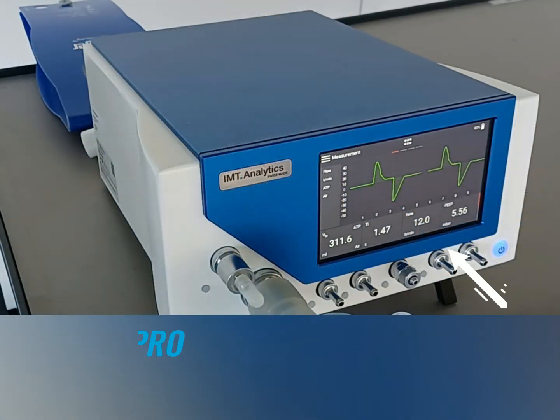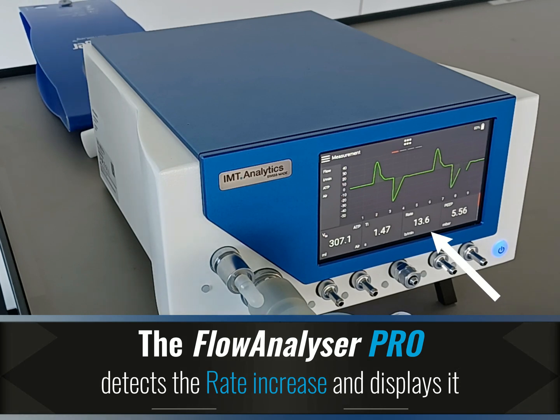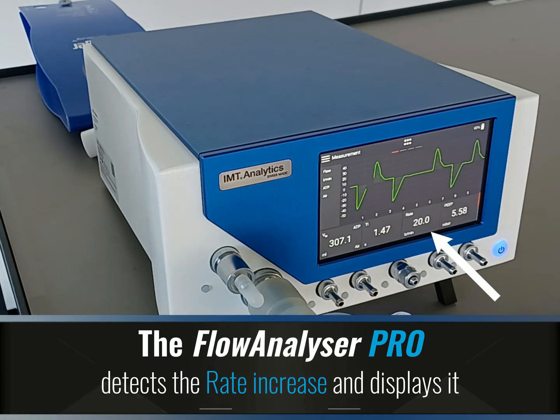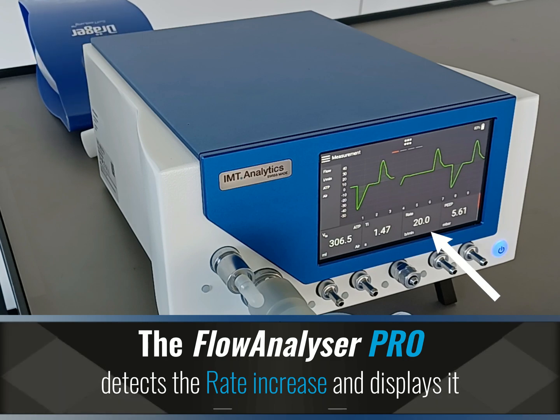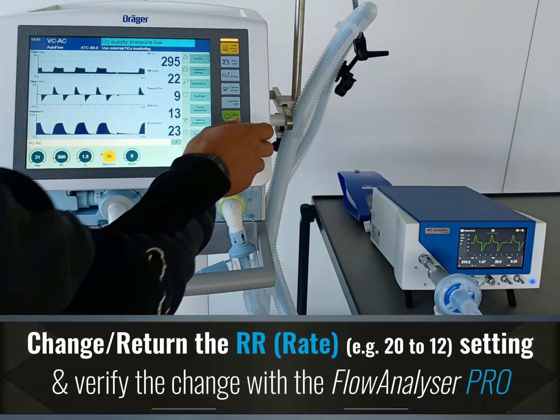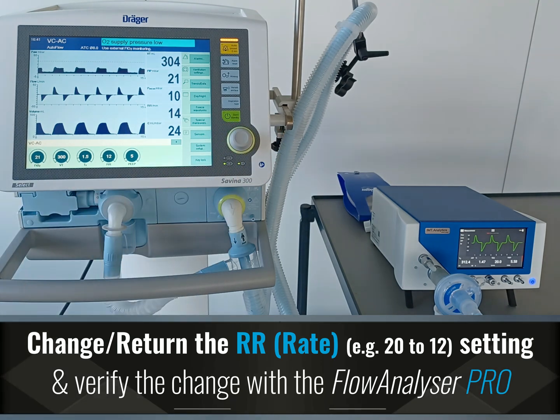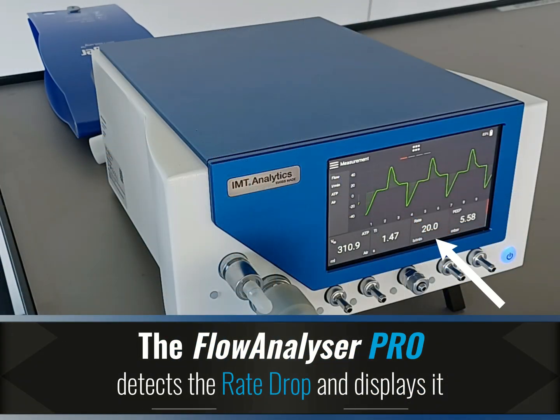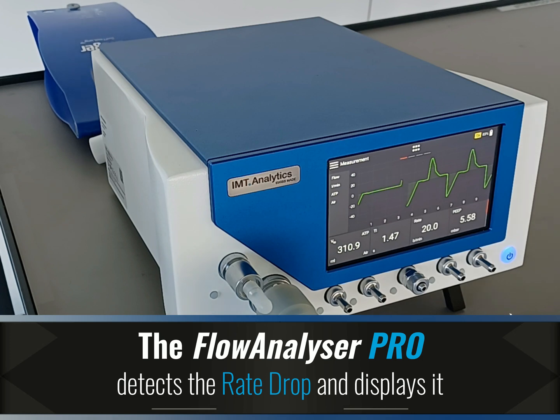The Flow Analyzer Pro detects the rate increase and displays it. Change or return the rate setting and verify the change. The Flow Analyzer Pro detects the rate change and displays it.